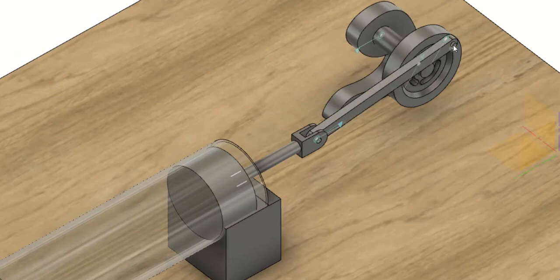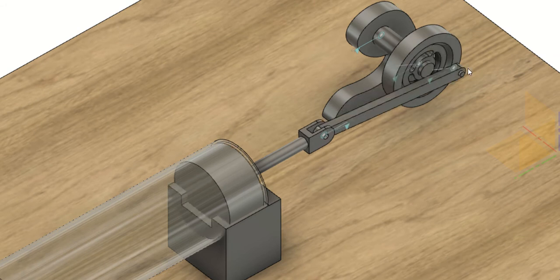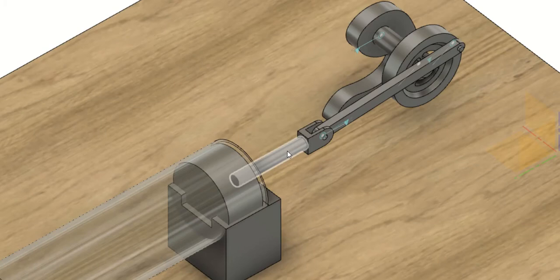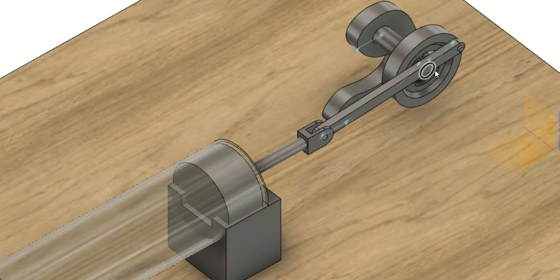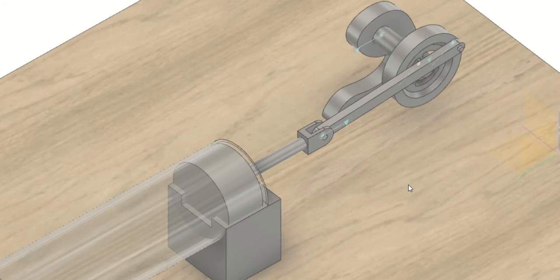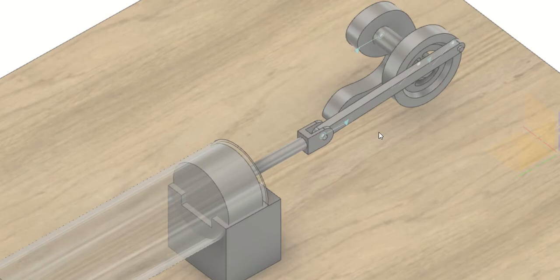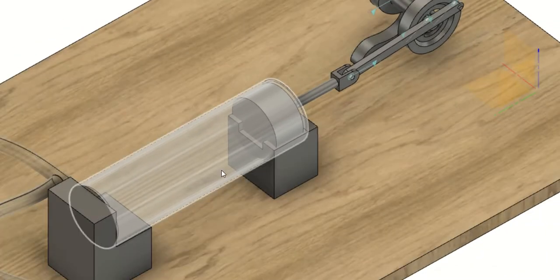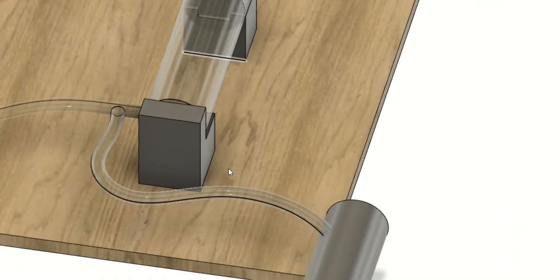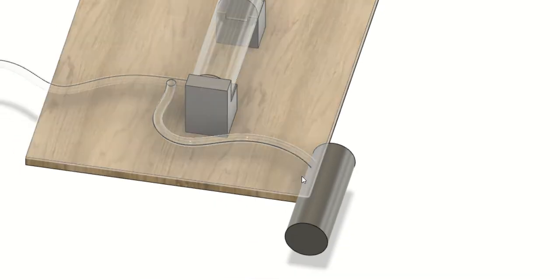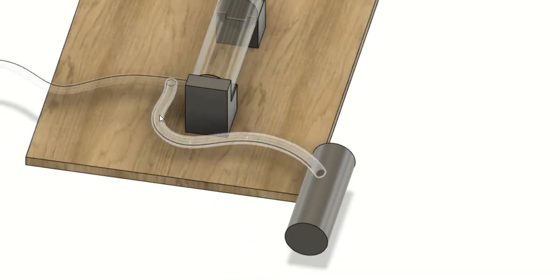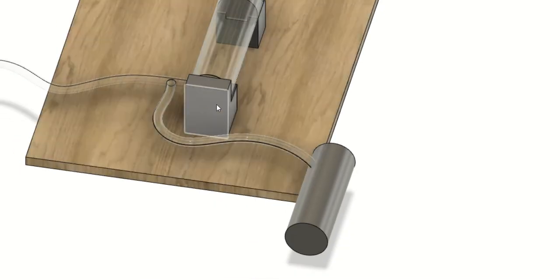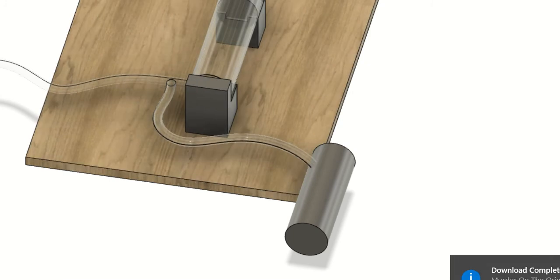This is the revolving rod and this is the stationary rotor right here. This is the piston, and obviously this is the base. This is the cardboard on which this whole assembly has been set. You can see I've also shown the oxygen cylinder here.